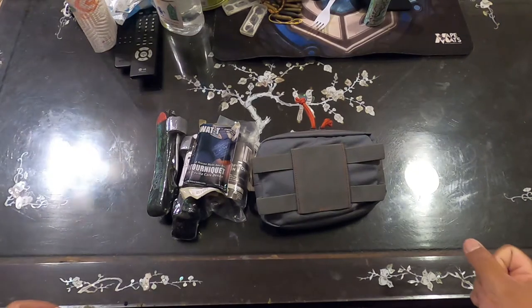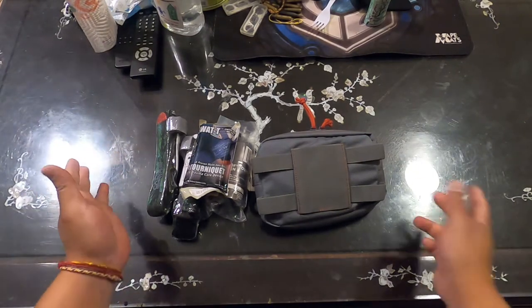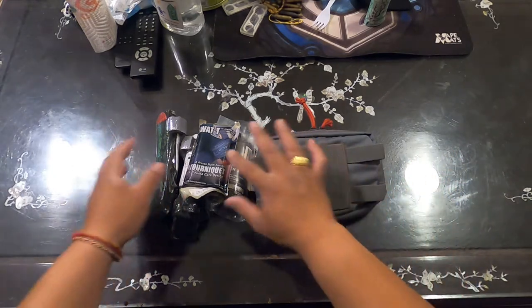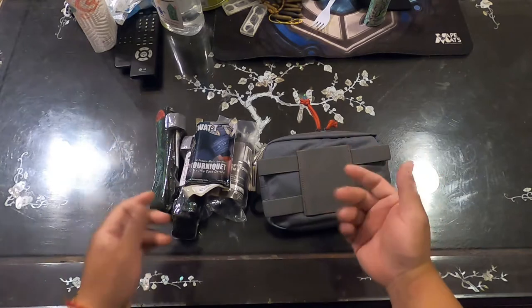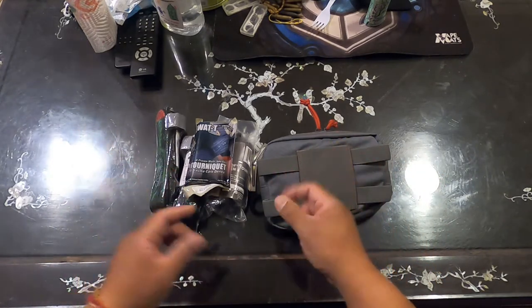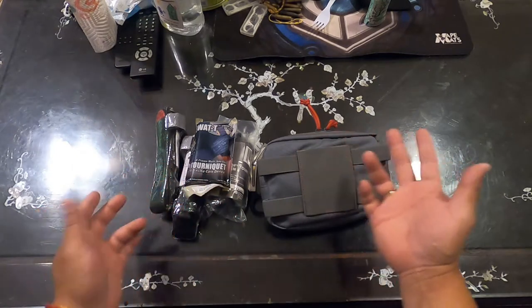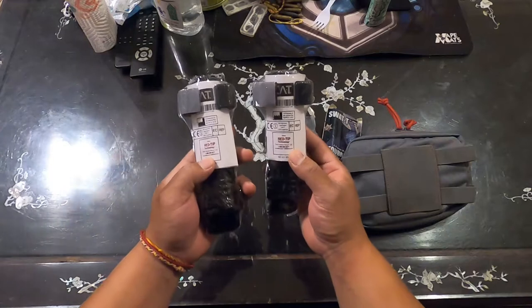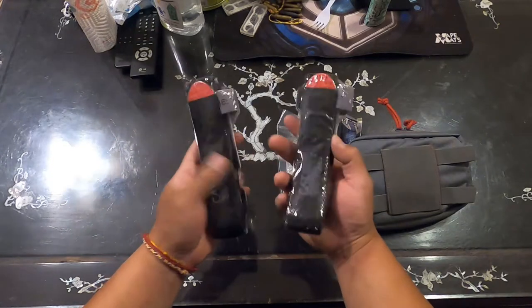This is a medical kit, but it's more for a car, and that's the reason why I bought it. Let's get up close. This kit here is about $293 to $284, closer to $300. We'll get into why it's really expensive right now.